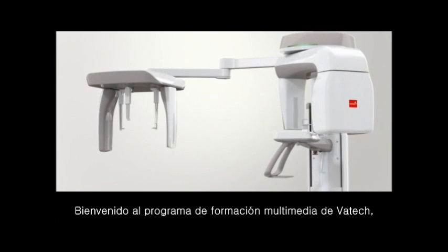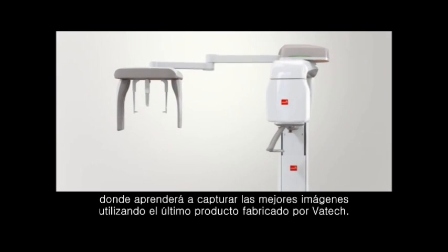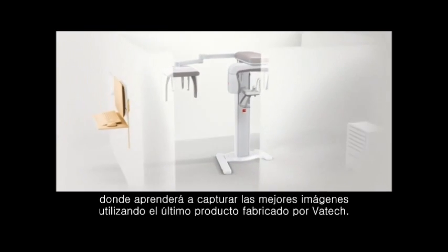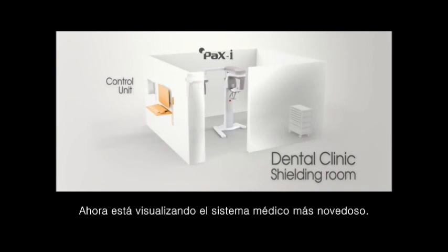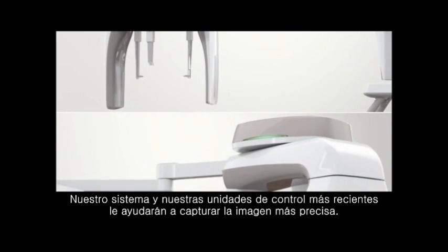Welcome to VATECH video training that shows you how to take the optimum images using the latest product manufactured by VATECH. Now you are watching the state-of-the-art medical system. Our latest system and control units will help you acquire the most accurate images.